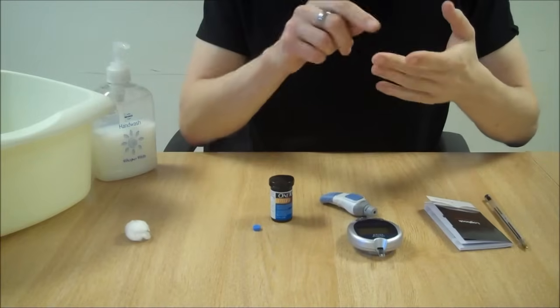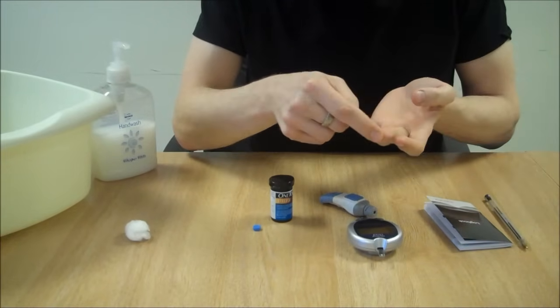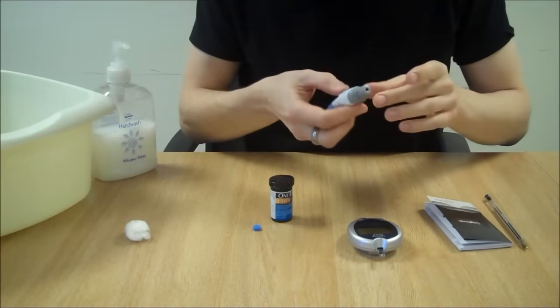Prick your finger at the sides as it's less painful than at the tip or at the pad. So prick it on the sides just here.